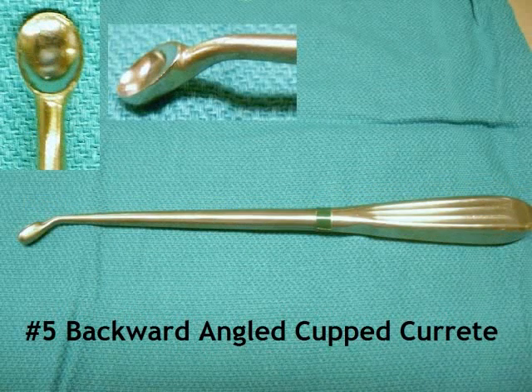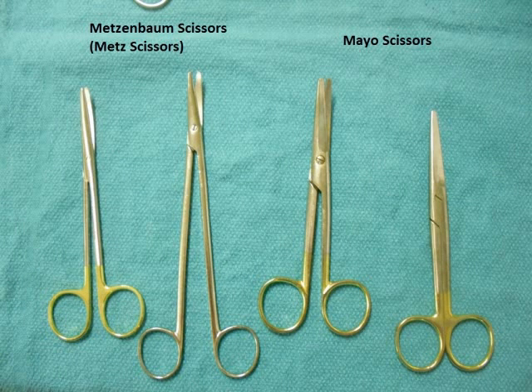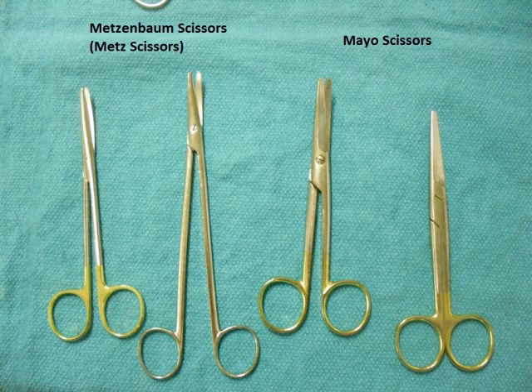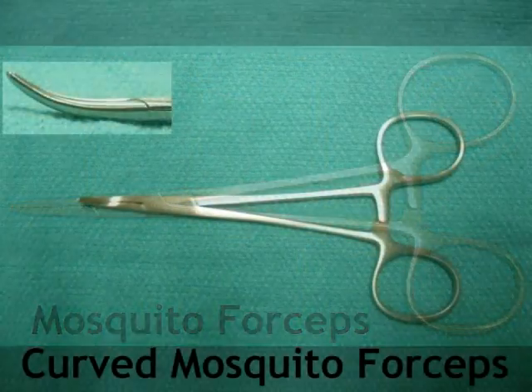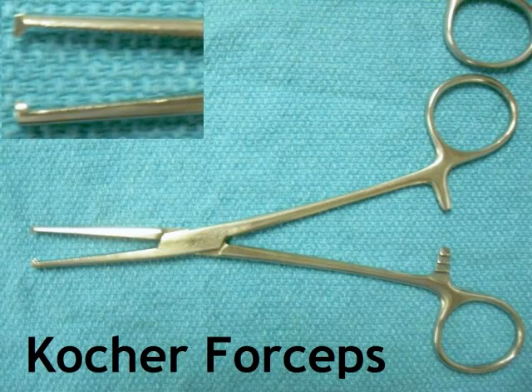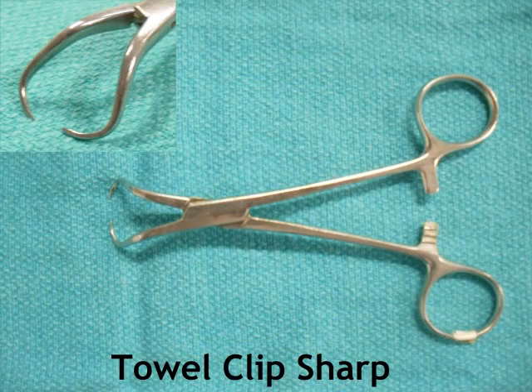How about the scissors? The commonly used ones are the Metzenbaum scissors, sometimes referred to as the Metz — there is the small and the large. There is also the Mayo scissors, curved and straight. Let's quickly flip through the clamps: Allis, Kelly, Mosquito, curved mosquito, Kocher. I should have mentioned that at the beginning of most cases we would have asked for towel clips, used for draping the patient. There is the small sharp towel clip and the small blunt towel clip.